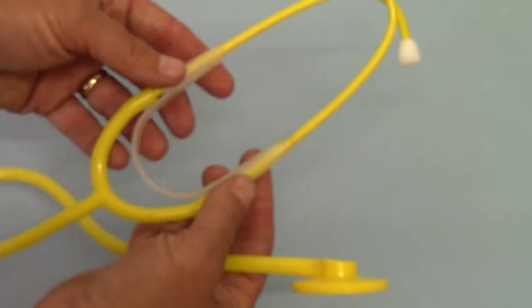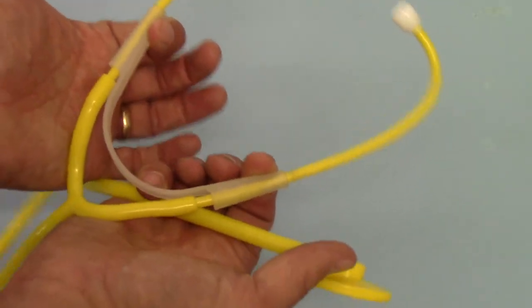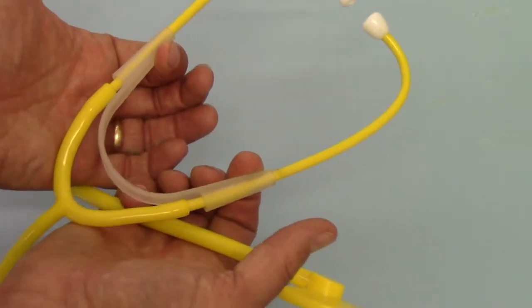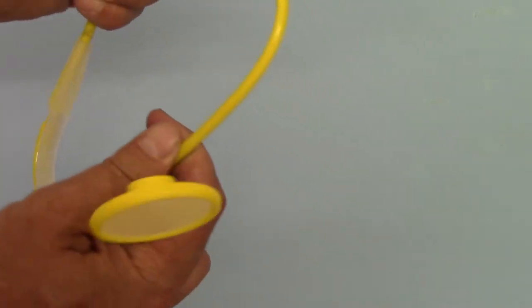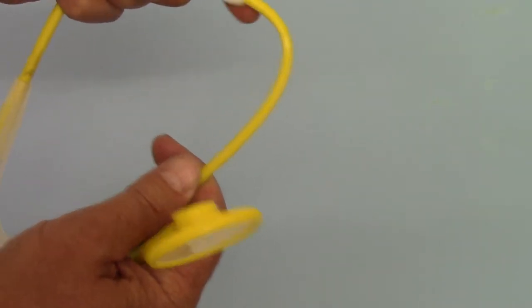You'll see that the sprung headset is very similar in nature to the spring in terms of the load to a normal binaural. It's got firm vinyl ear tips.